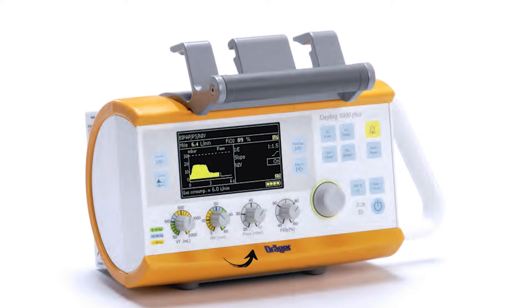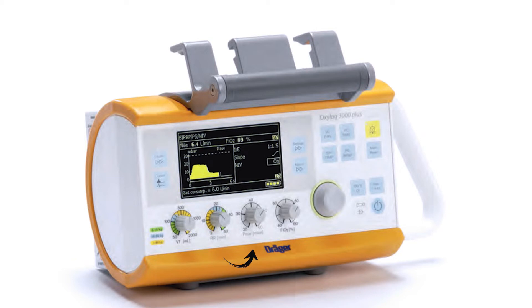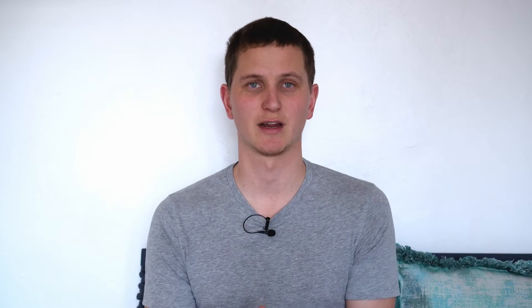So 0.21 is 21%, 0.5 is 50%, and 1.0 FiO2 is 100%. Normally we want to start patients on 100 percent oxygen, and then once they're on the vent and we can see what's happening with their sats, we can wean them down to less oxygen, because we don't want to be giving them too much oxygen — that's not good.